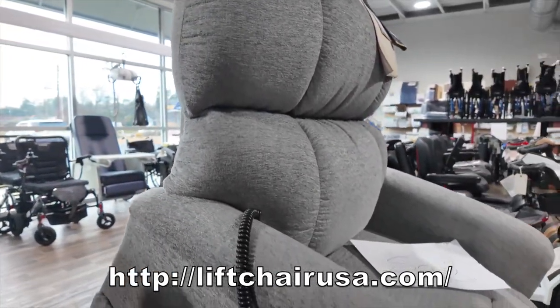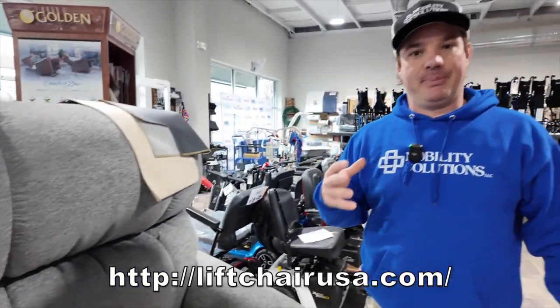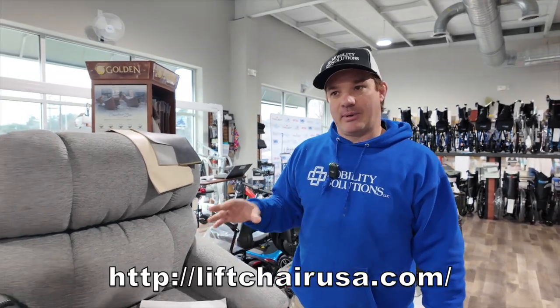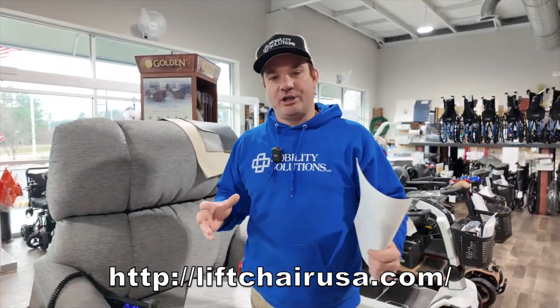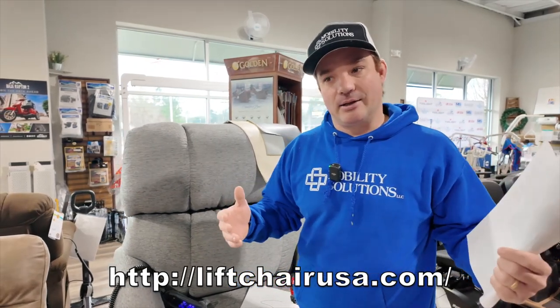You can upgrade it. Let me tell you really quickly what we're doing with this chair. We have a customer named Pete who has bought a bunch of stuff from us and needs a new chair. He's about 375 pounds, and when he got his current chair he was heavier — there was no chair that would fit him and feel comfortable, so he knew it wouldn't last long.